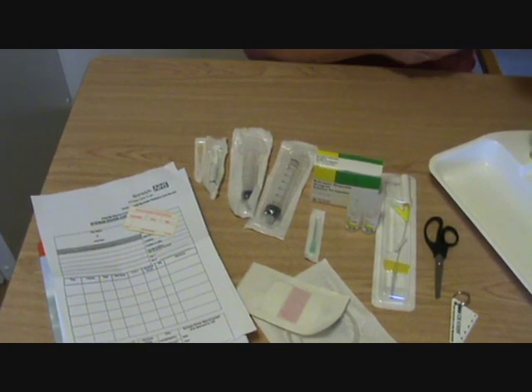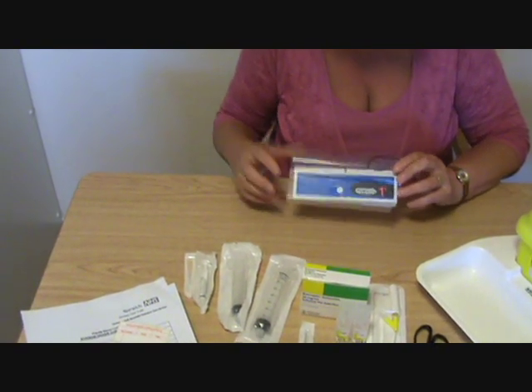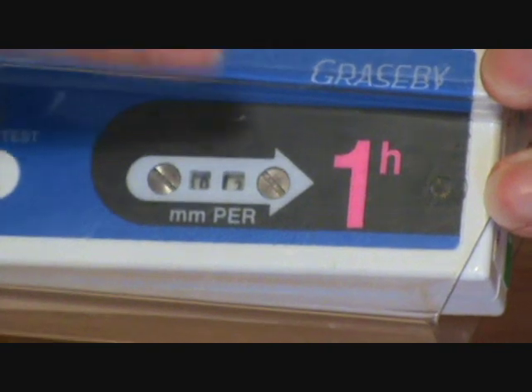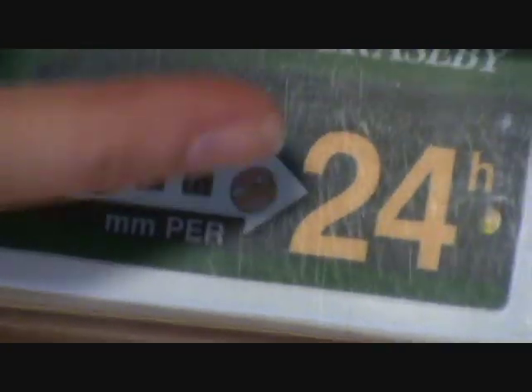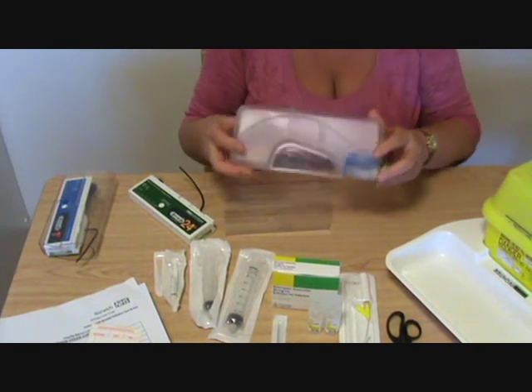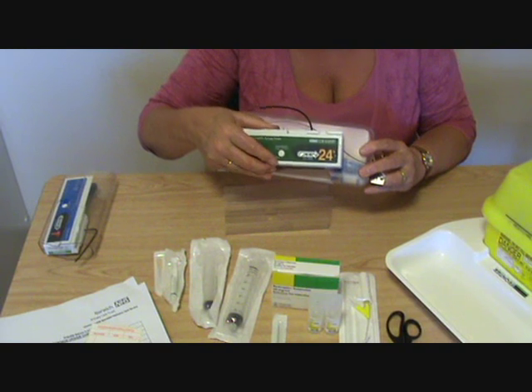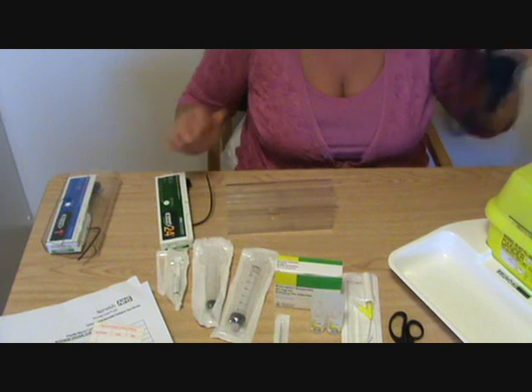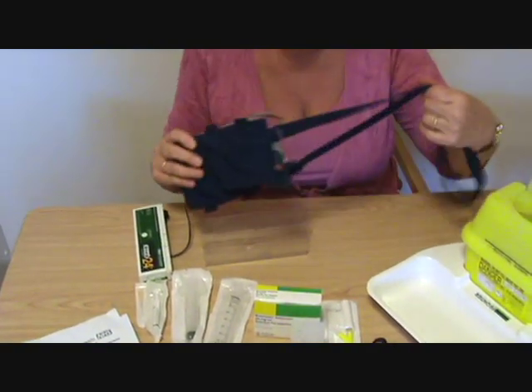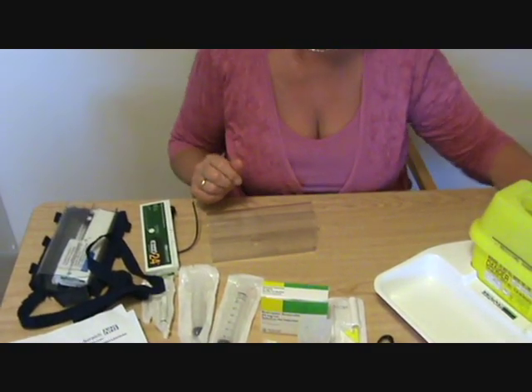Now we come to the actual drivers themselves. The MS-16 is blue and gives so many millimetres per hour — we very rarely use this now and most authorities are phasing them out. The one we're using much more often is the green MS-26, which, as you can see, shows how many millimetres you're giving in 24 hours. I'll show you how to measure the millimetres that go into the syringe. Both drivers have a perspex box, but if you have a patient you're a little anxious about, you can use a locked box so they can't tamper with it. If you want a patient to walk around with the syringe driver, you can put it into one of these carrier bags, easy to put over the shoulder. Those are all the component parts you need to set up the driver.